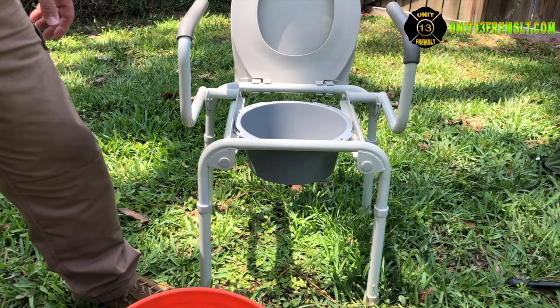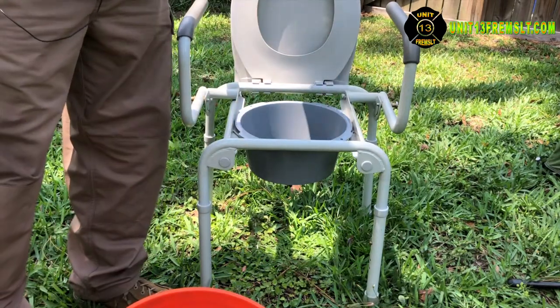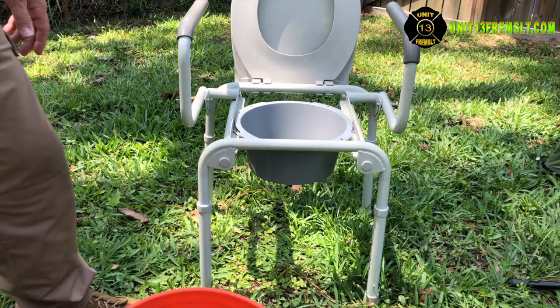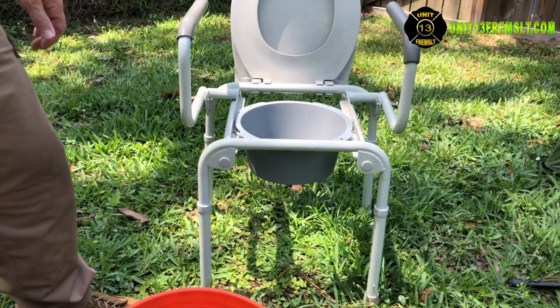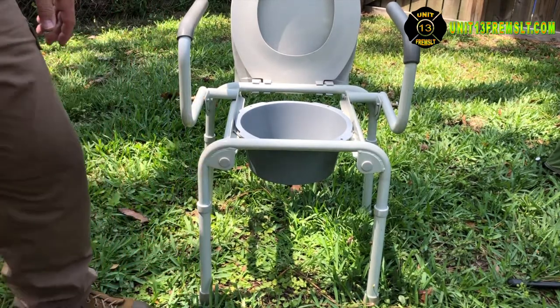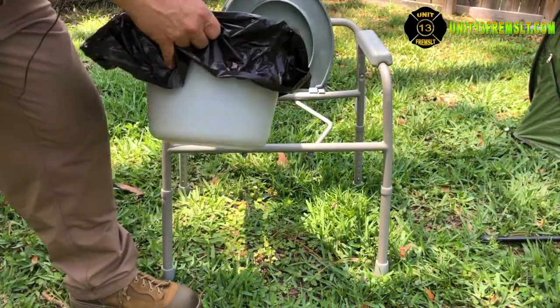These things are not rust-proof — you can see rust stains along the edges here. If you clean with bleach, make sure you rinse it really well and dry it thoroughly afterwards, otherwise you'll end up with a lot of rust. Now I'm going to bring out the other model.